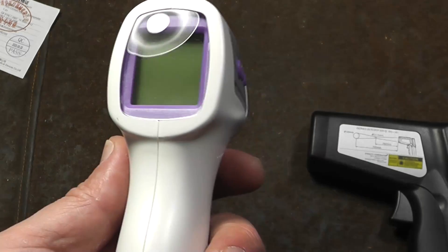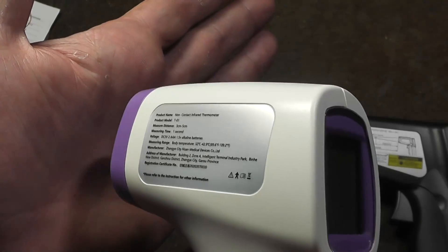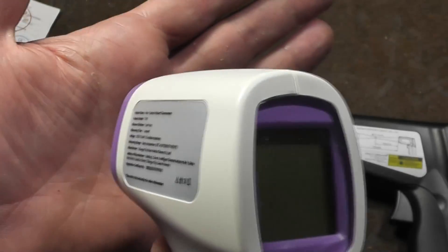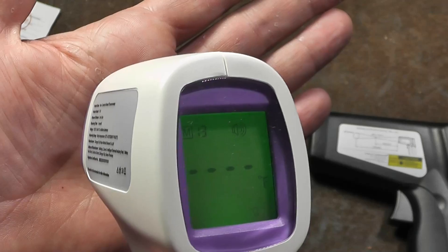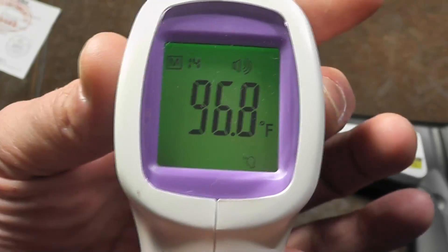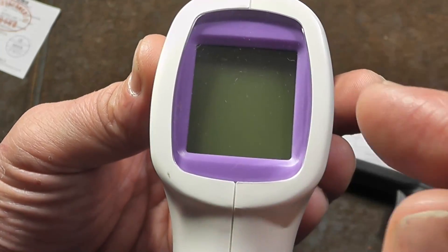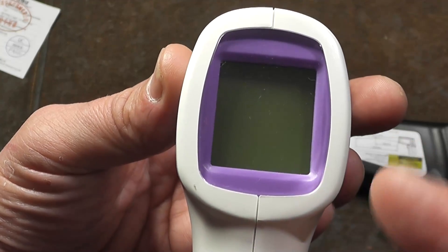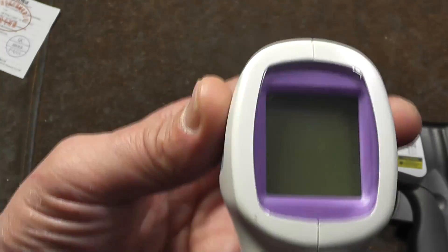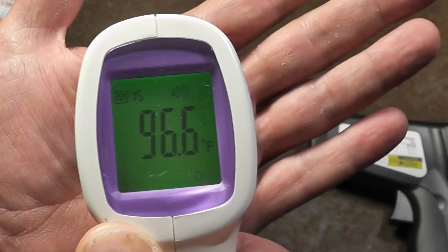So one like this is much different, because it's designed to be used very close, within about one to two inches of the skin, and it runs much more accurately. Something like this is also designed for actually detecting fevers. If it's 99 or less, it'll display green. If it's between 99 and 100, the screen will be yellow. And if you're over 100, the screen will be red. This is the style that you would want to have to check if somebody actually has a fever.